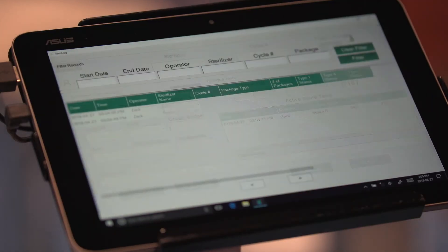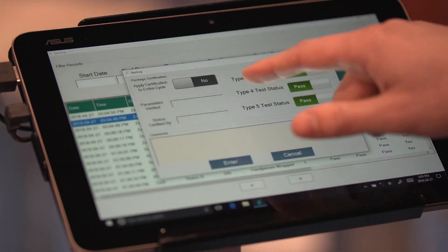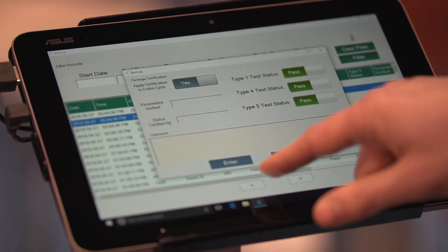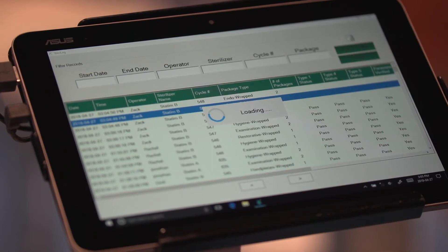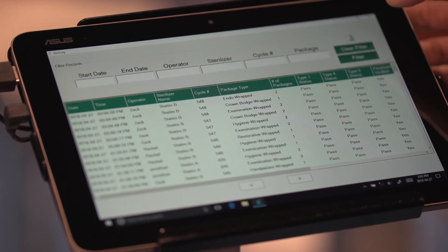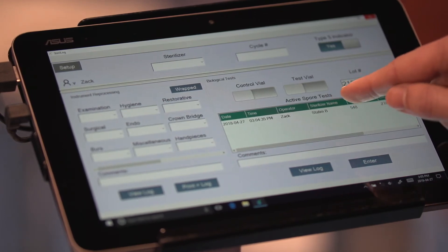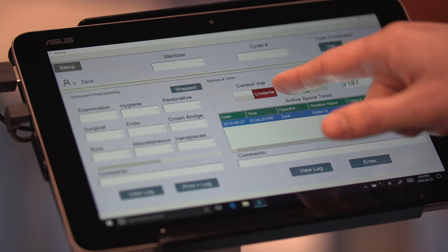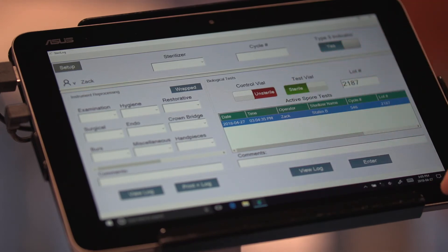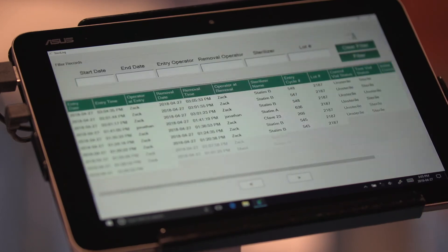Later I'll come back, identify the cycle in my log, and certify the entire cycle. 24 hours later I'll come back, select my biological indicator, certify that the control vial is unsterile and the test vial is sterile, and pass it to my historical log.